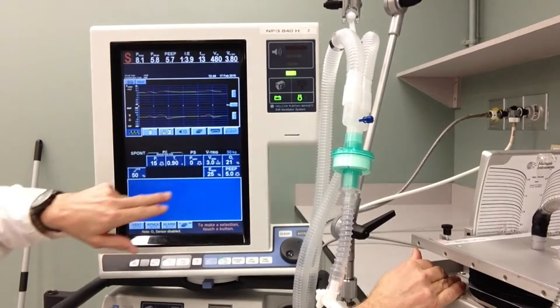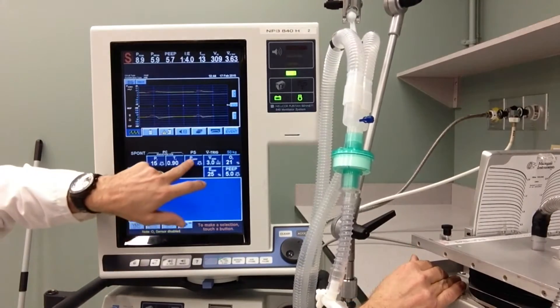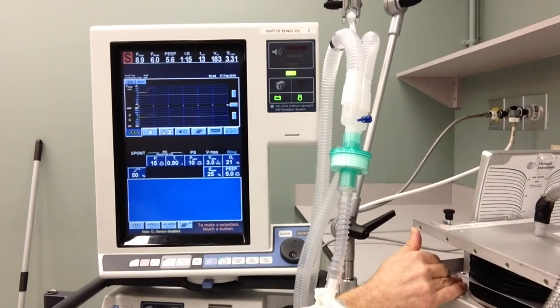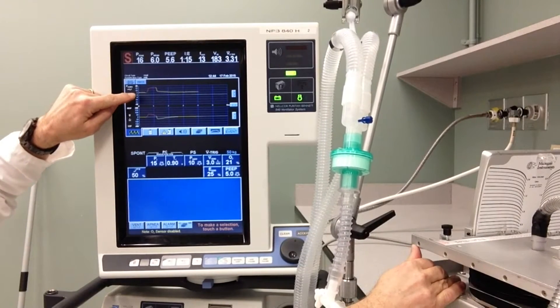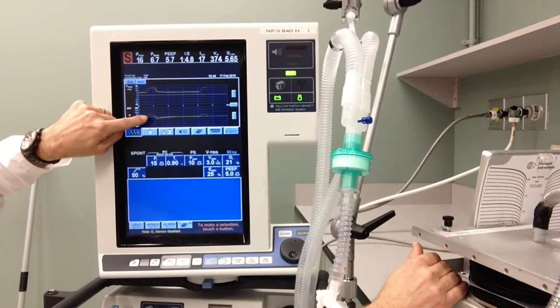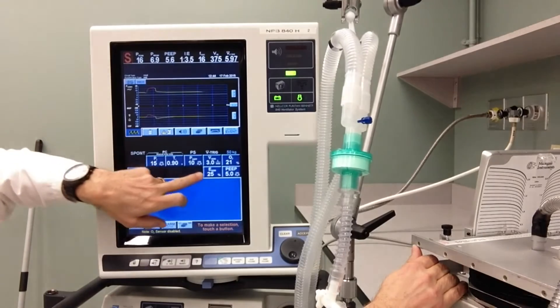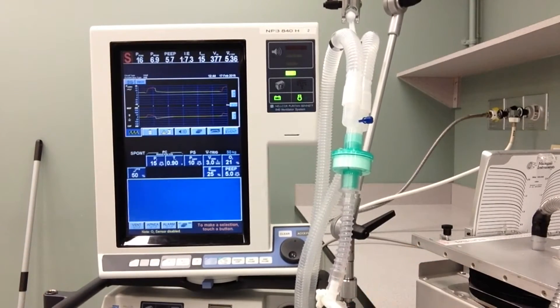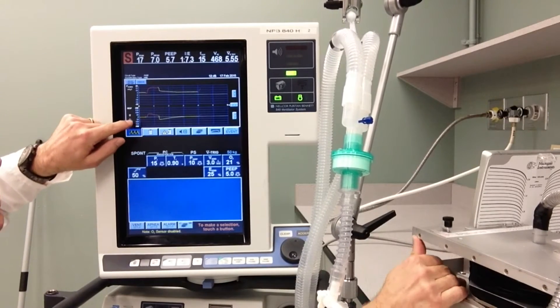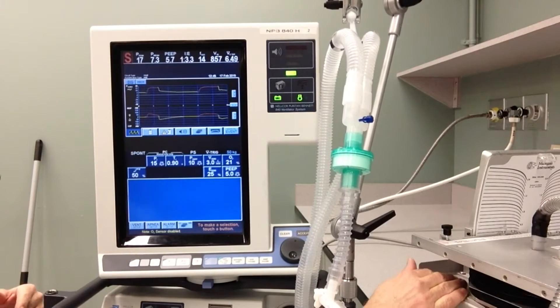What I'm going to show you now is when I change from just the CPAP level — where there are no real changes in our pressures — I'm going to increase the pressure support level to plus ten. As soon as I do that, you can see that during inspiration the pressure in the circuit jumps up to plus ten centimeters of water pressure. I've got my inspiratory flow, and then as soon as the patient starts to exhale — or flow drops to 25% of my peak inspiratory flow — the ventilator goes into exhalation and allows the patient to exhale.